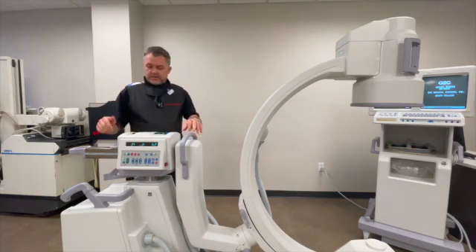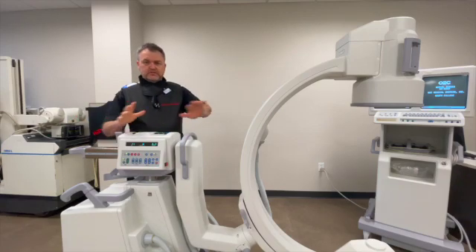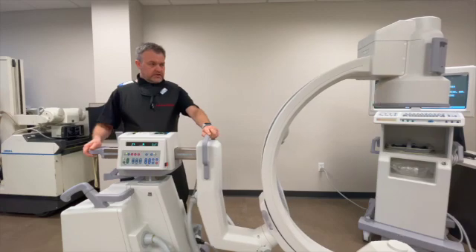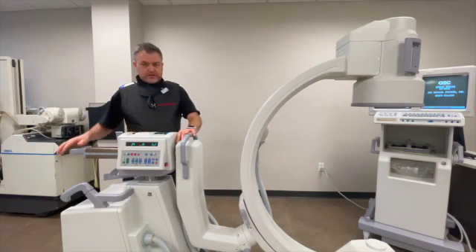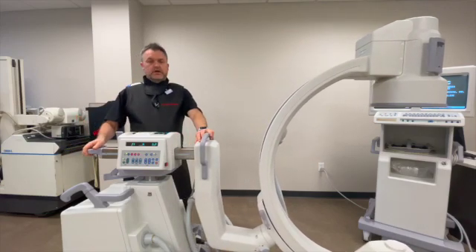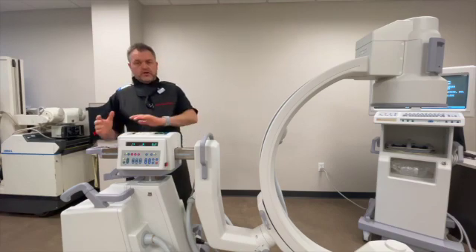The first one is the in-and-out lock. You usually have a control lever or a lock at the back, and what that does is it allows the boom to move in and out of the field. You can see there are calibrations on this arm up to 20 centimeters. Typically when you come into a case, especially starting out new, you want to set your boom arm about halfway, so you have a little bit of wiggle room to move forward or come back.